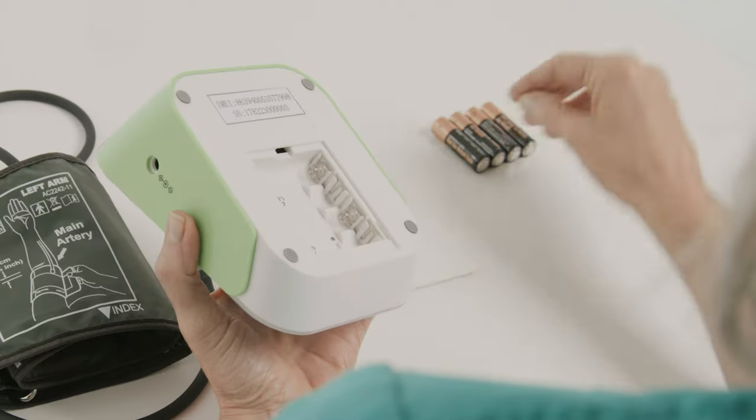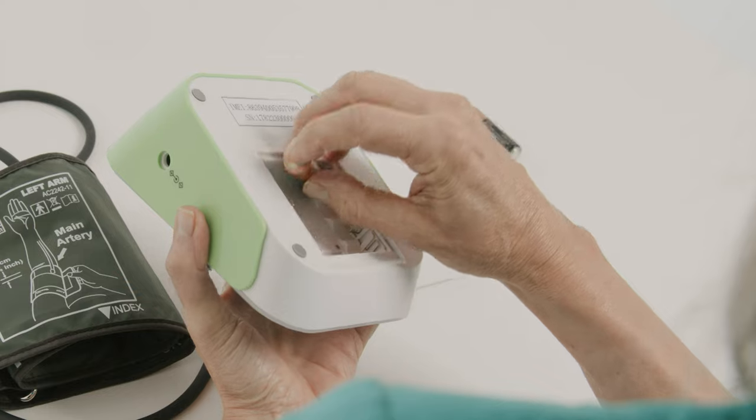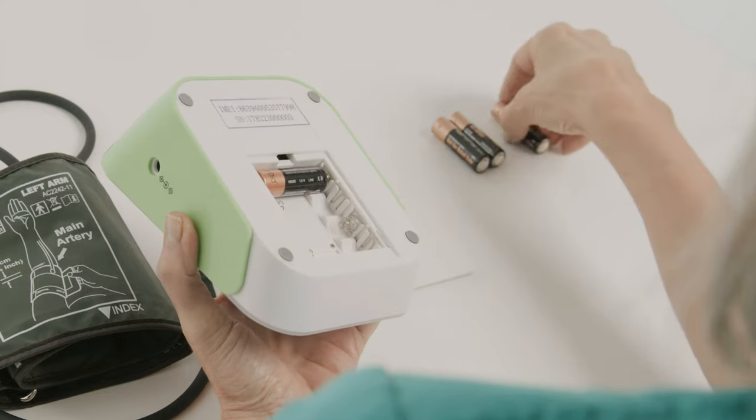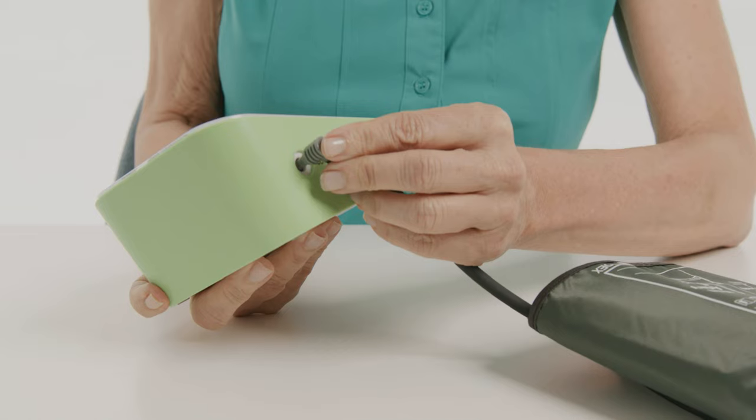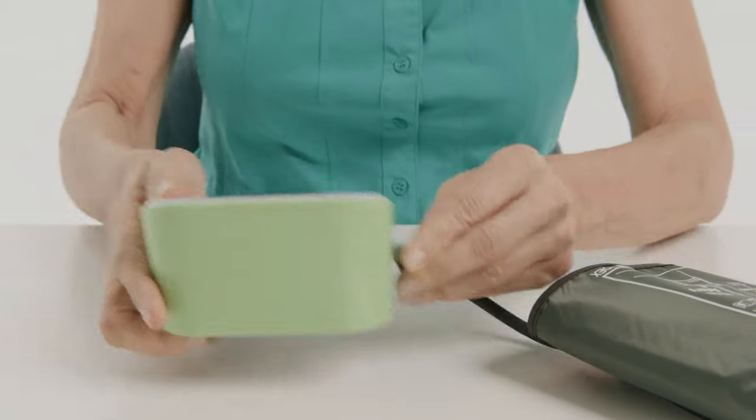If you experience any issues with your device powering on, please change your batteries. If your reading is not being taken, please make sure the cuff tubing is secure and redo your cuff placement.